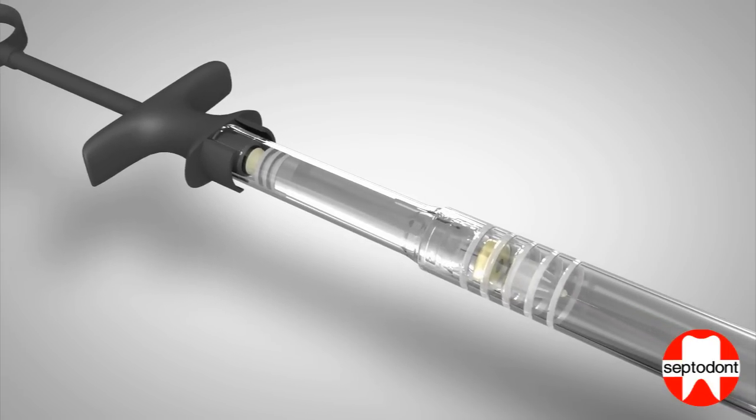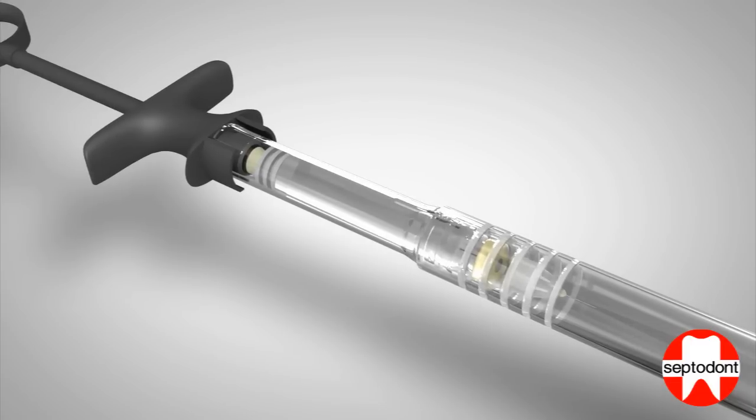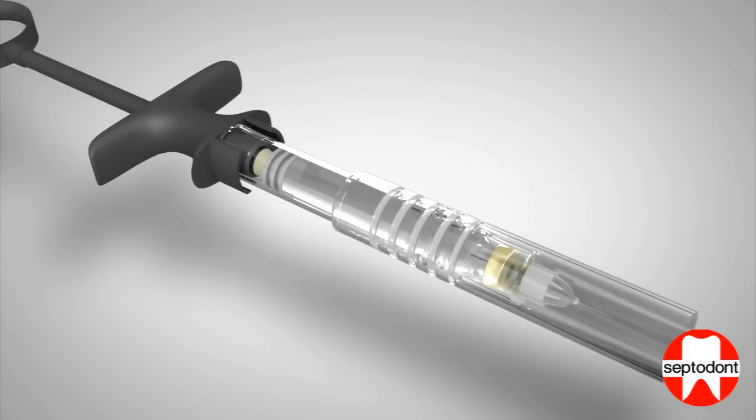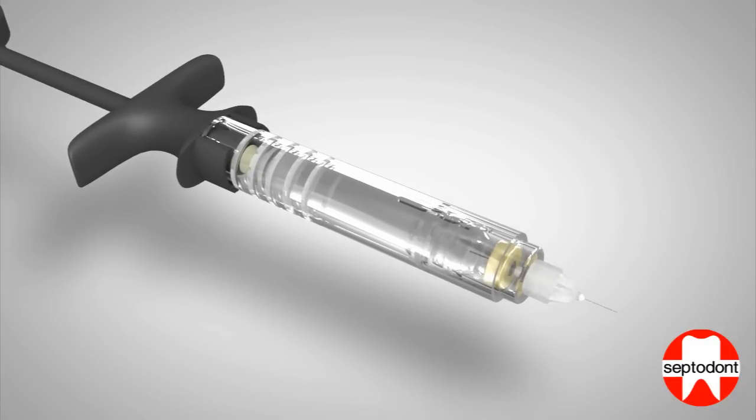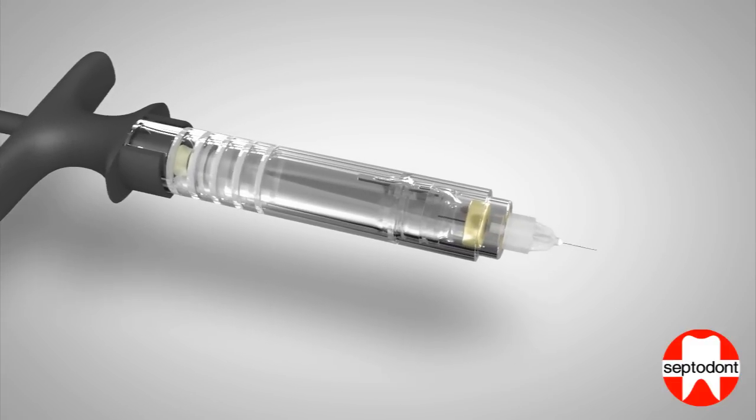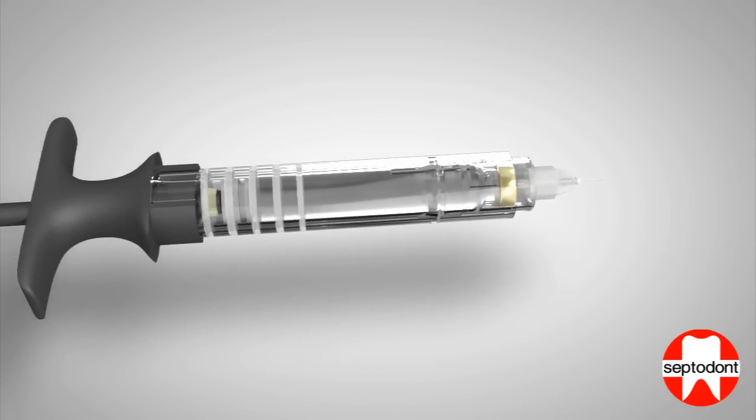When the device is required to complete the injection procedure, carefully slide the protective sheath back to expose the needle as in step 3, and continue the injection procedure.